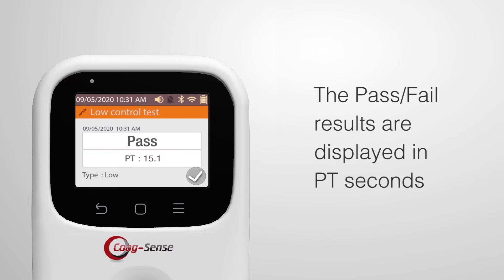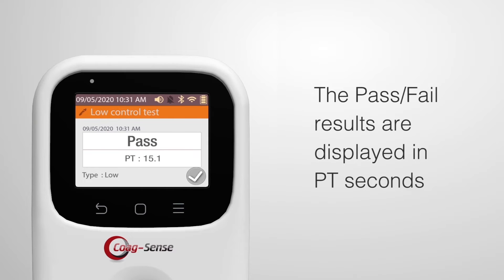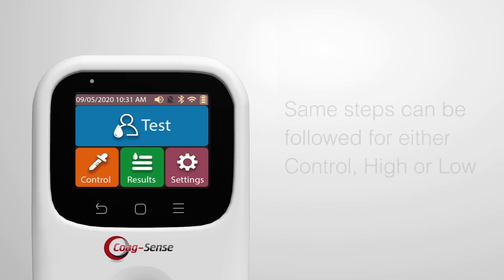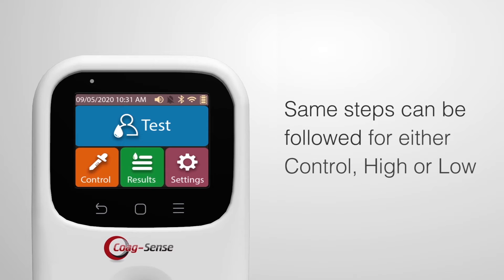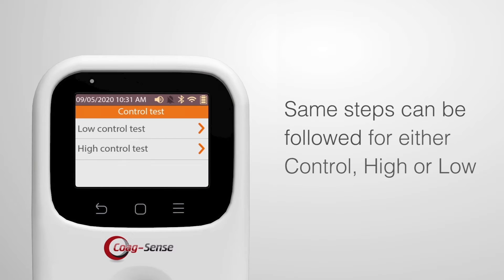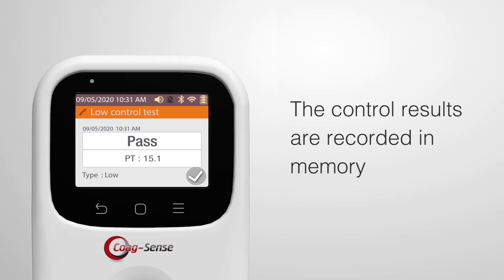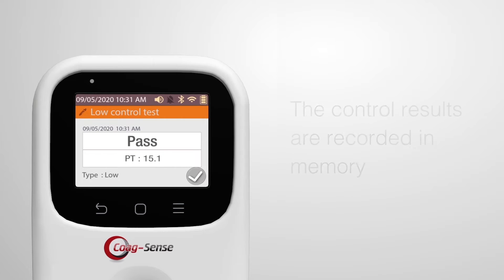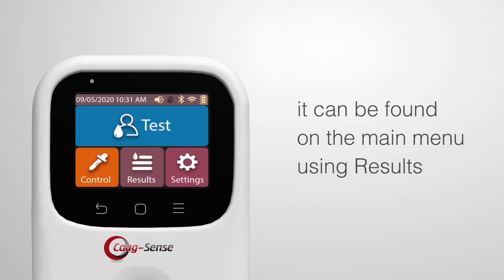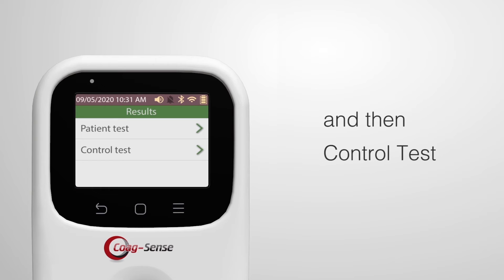When testing is complete, the pass or fail results are displayed in PT seconds. The same steps can be followed for either high or low control. The control result is recorded in memory and can be found on the main menu using Results and then Control Test.